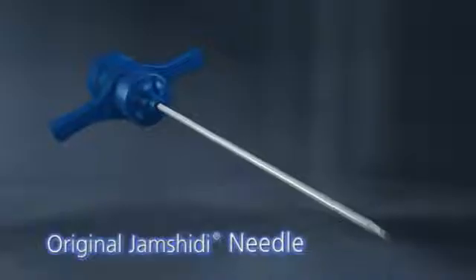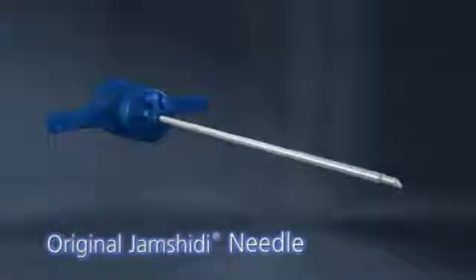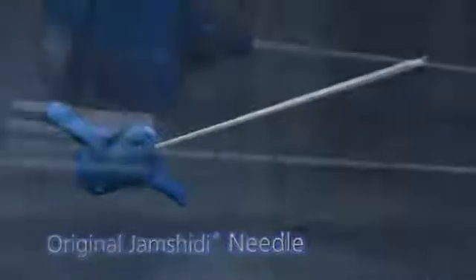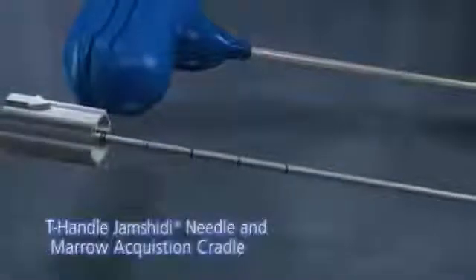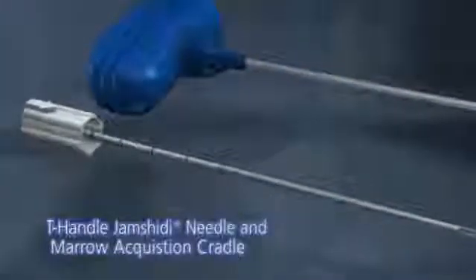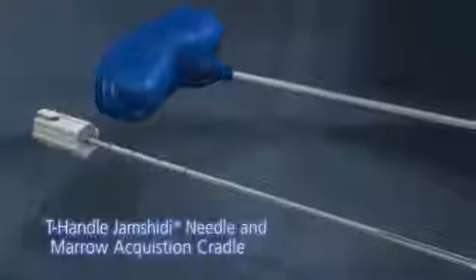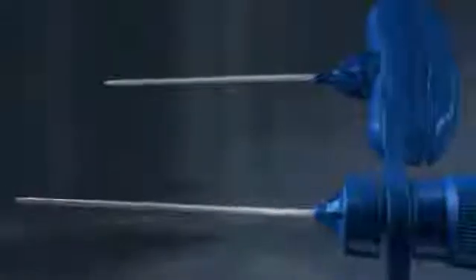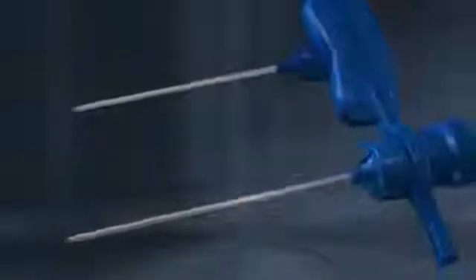For over 40 years, the Jamshidi name has been synonymous with proven reliability and superior results. From the original Jamshidi needle to the advanced T-handle Jamshidi needle with crown tip and marrow acquisition cradle, Jamshidi products deliver dependability and innovative features that make them a first choice in bone marrow biopsy needles and trays.